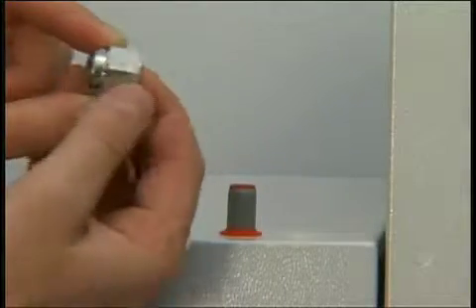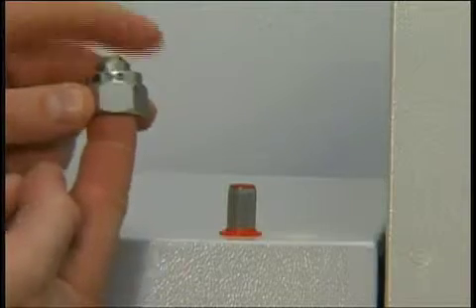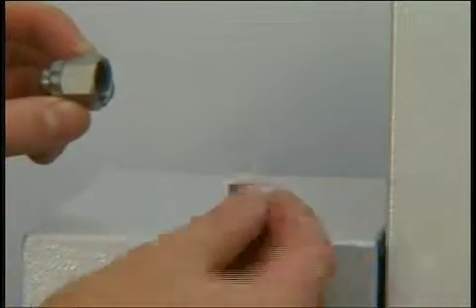Reassemble the sprayer nozzle assembly and run a test lens, making sure that the pump cycles 12 to 14 times. If less than 12 beats, repeat back flushing procedure.